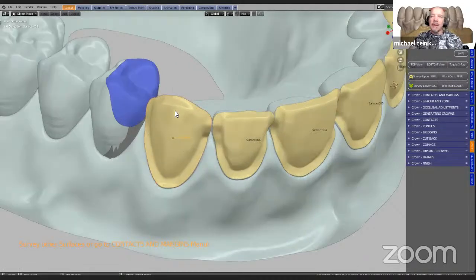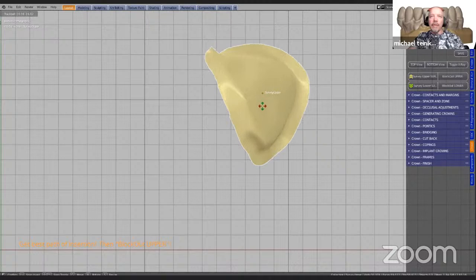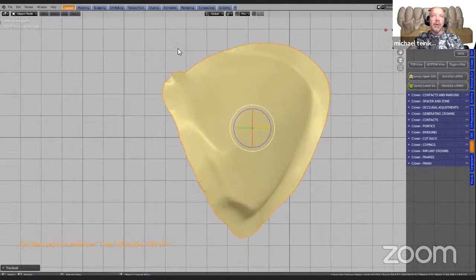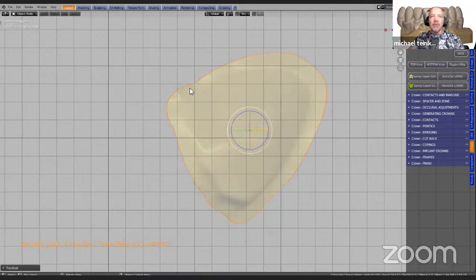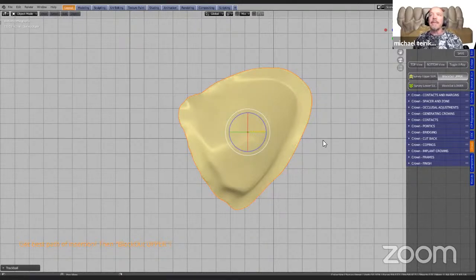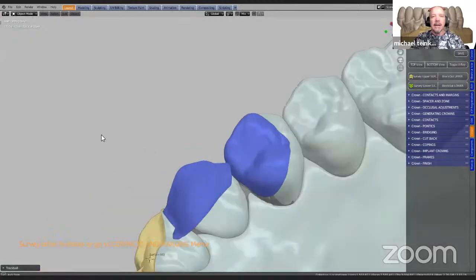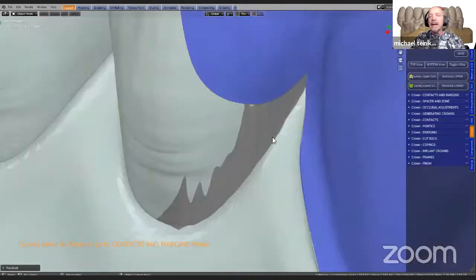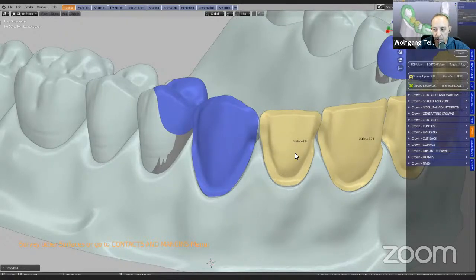Let us continue. I want to select this one and do the exact same thing again — survey. This will hide everything else from the scene so we get to see it here. This time we're going to go into this widget and move this contact. The problem area is over here if we had to place it, so we need to make it critically important to get the path of insertion correct, to minimize any undercuts. Then we're going to block this model out. This takes a few seconds, and then we'll continue to the next one and the next one until they've all been made. We can see there's a transparent gray — this is the blocked-out version of the yellow surface. With tooth preps for a bridge, for example, we can do the blocking out all in one go.